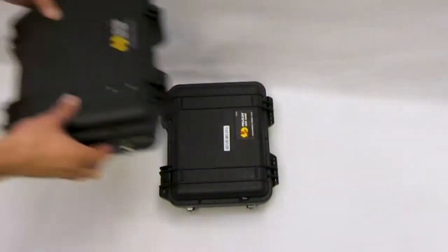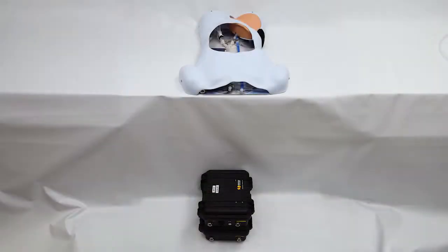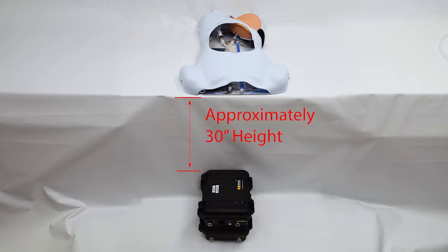Stack the pump on top of the sump. Place the body model on the table above the pump. The system was designed so that the body model should be approximately 30 inches higher than the pump. If the pump and body model are at the same height, the preset pressures will not be accurate.